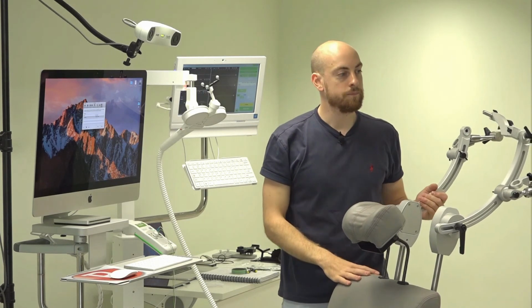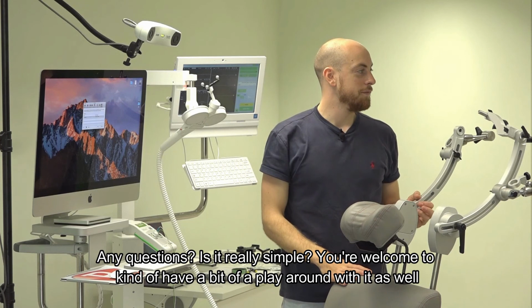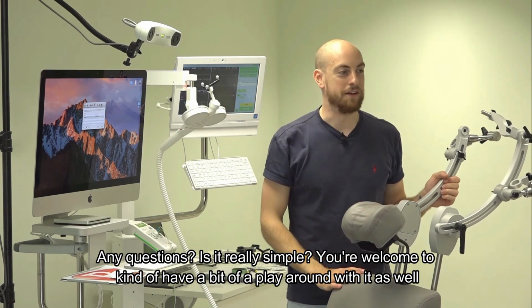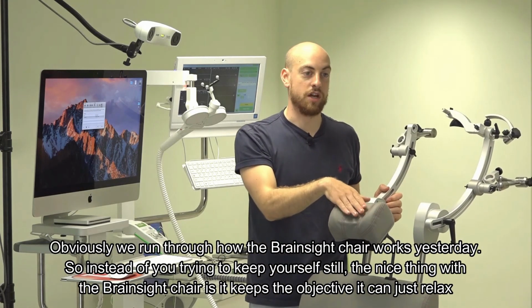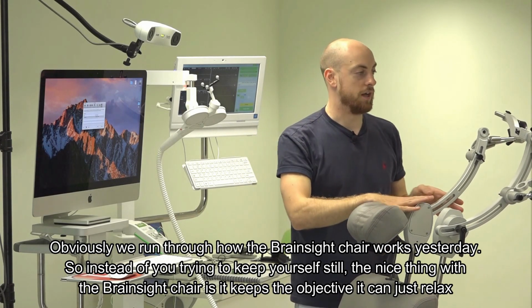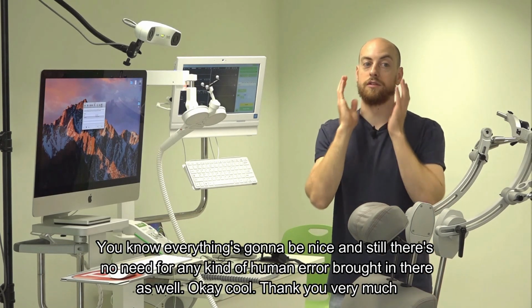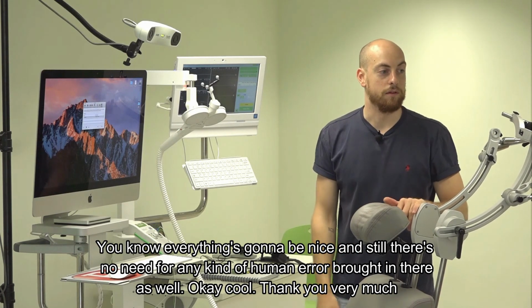So, any other questions? Is it relatively simple? You're welcome to have a bit of a play around with it as well. Obviously, we ran through how the BrainSight chair works yesterday. So instead of you trying to keep yourself still, the nice thing with the BrainSight chair is that it keeps the subject still, they can just relax, and everything's going to be nice and still. There's no need for any kind of human error to be brought in there as well.